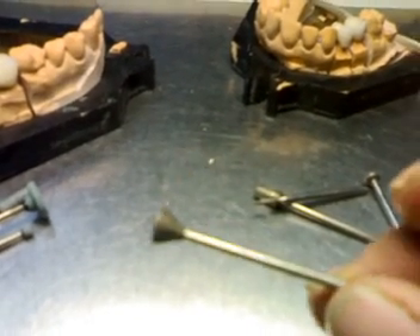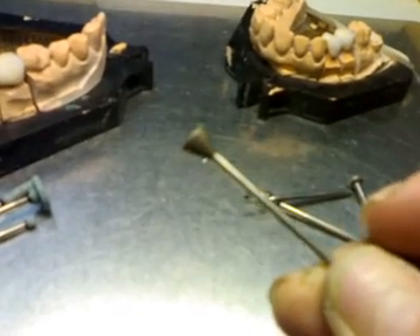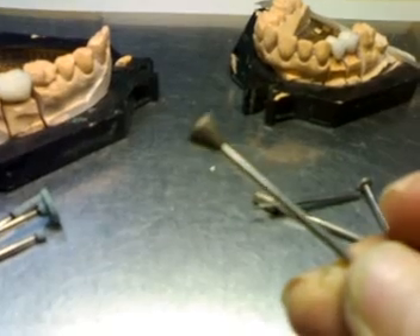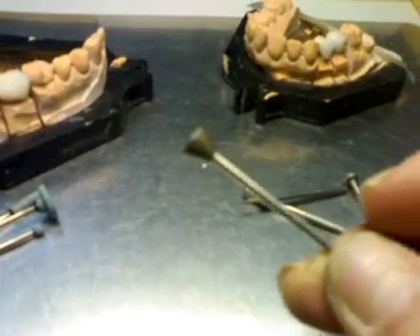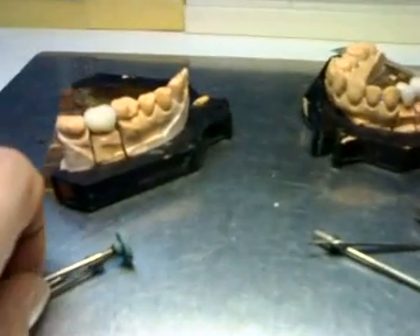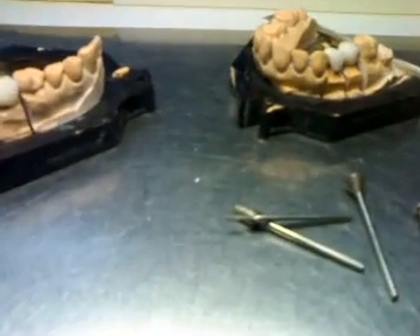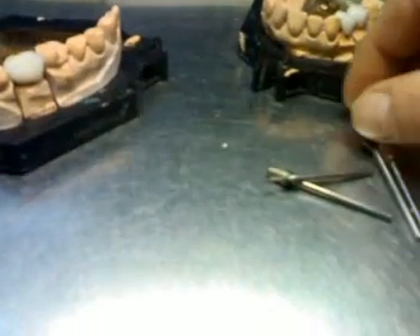The question is: will you buy a diamond burr? Are you able to charge this diamond burr on your doctor's invoice at the end? Crowns can be done in many ways — in an economical way, in a little bit more expensive, or very expensive way.